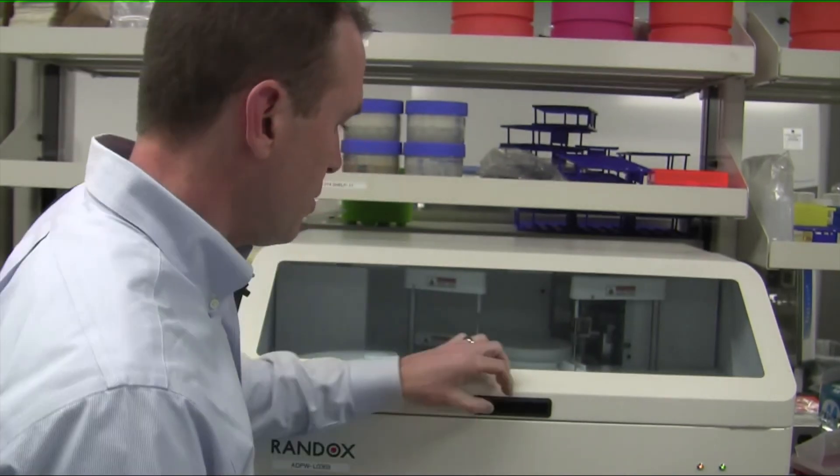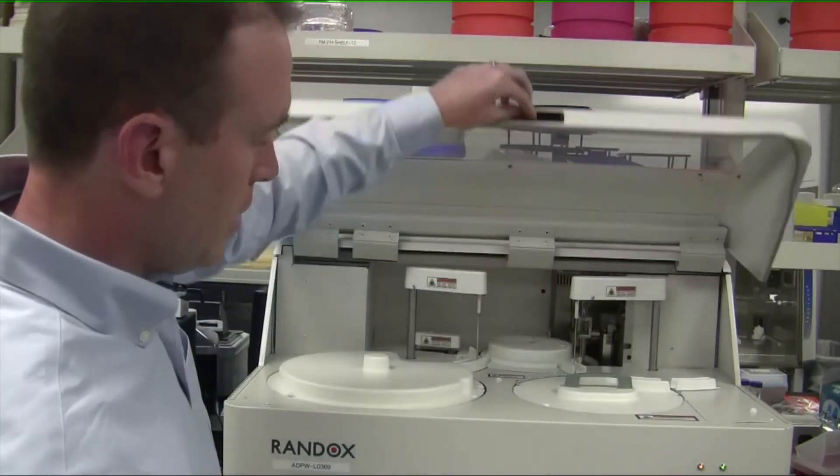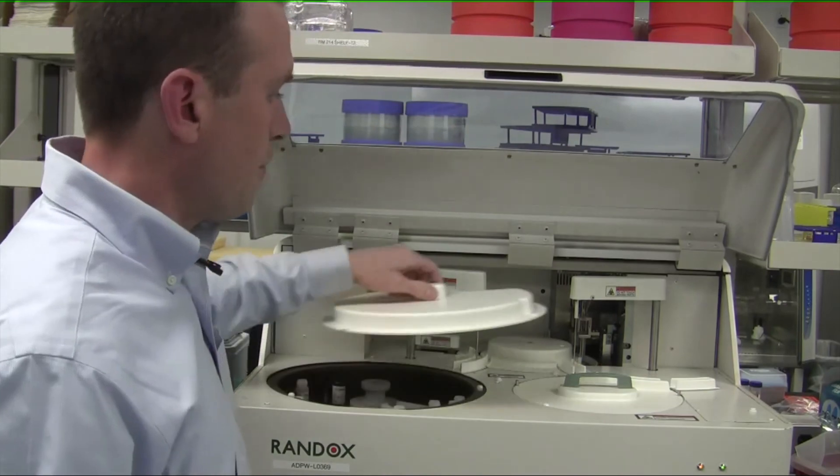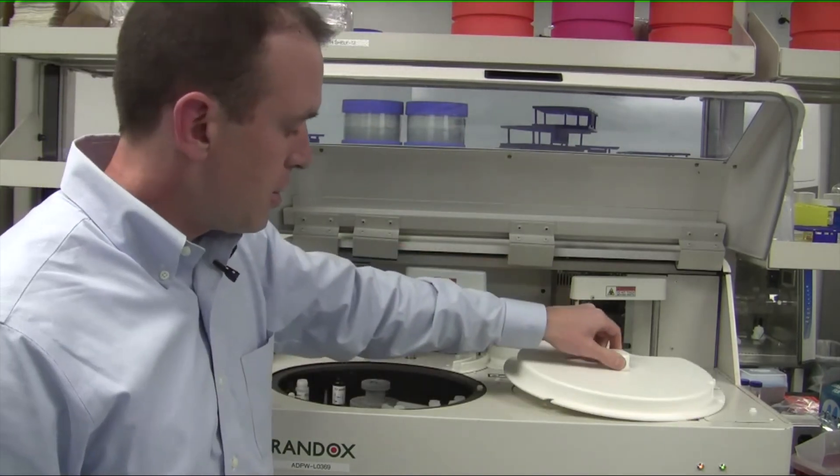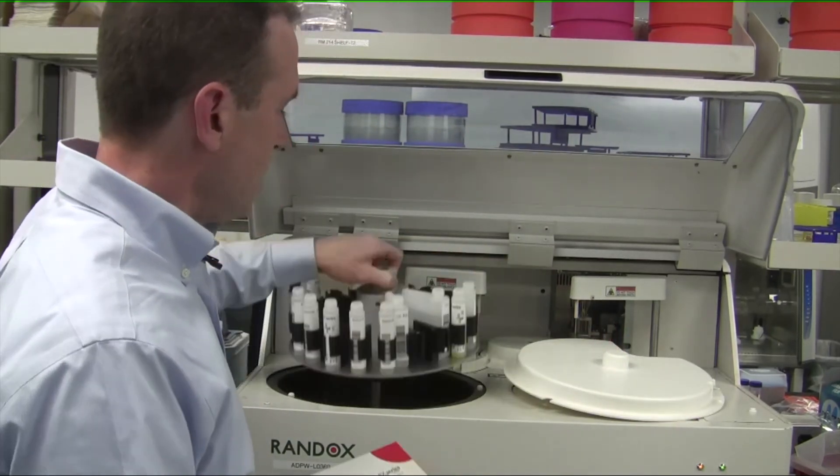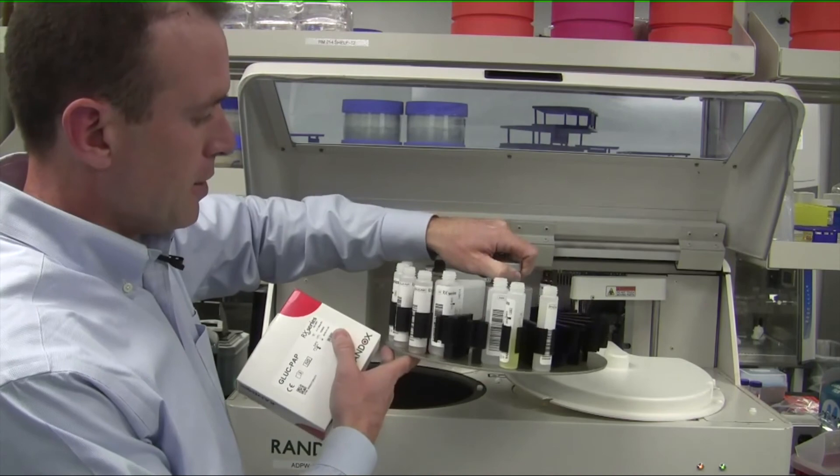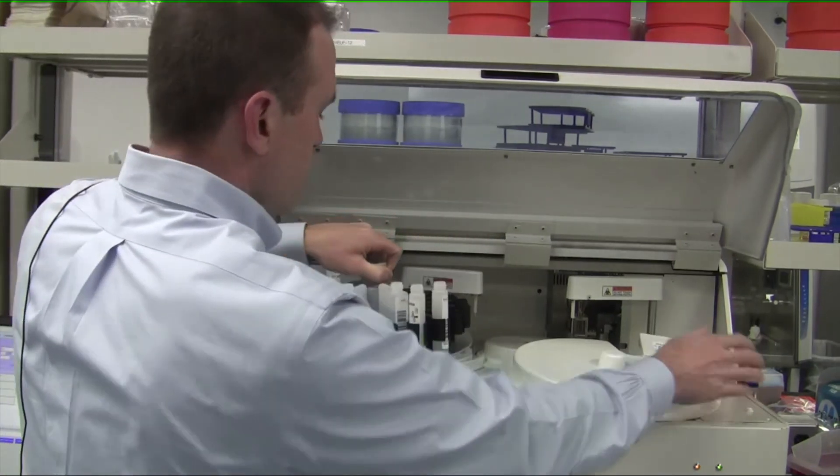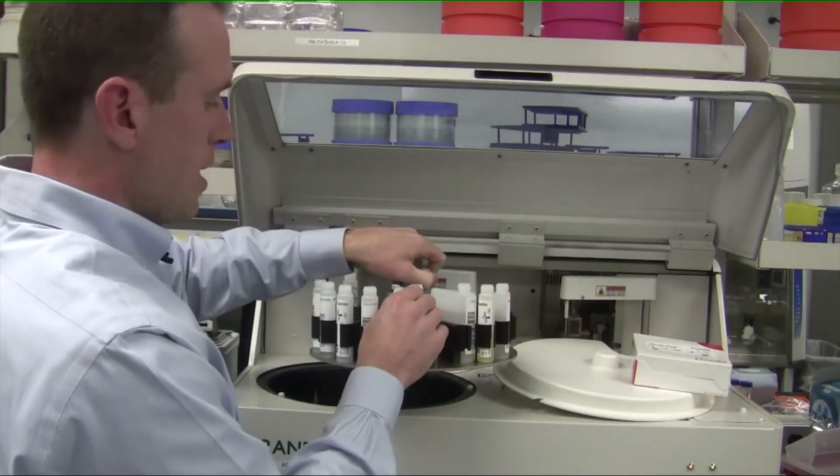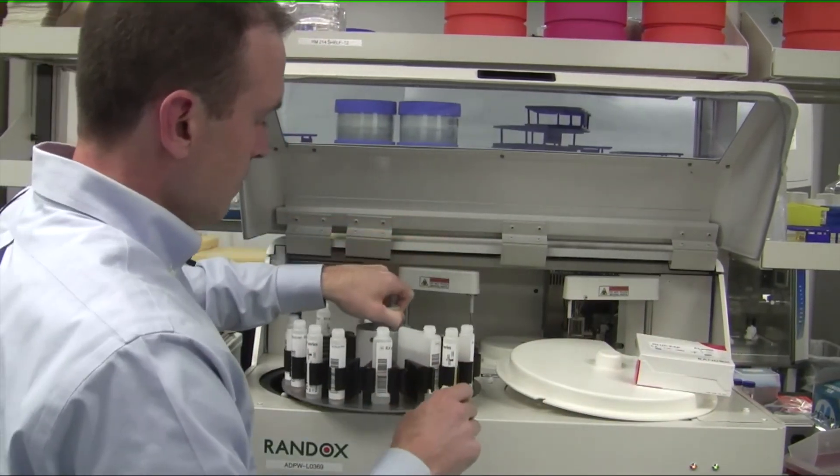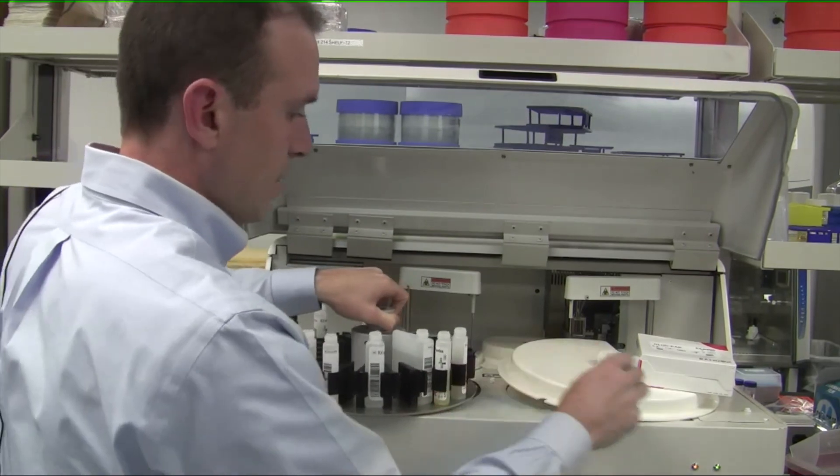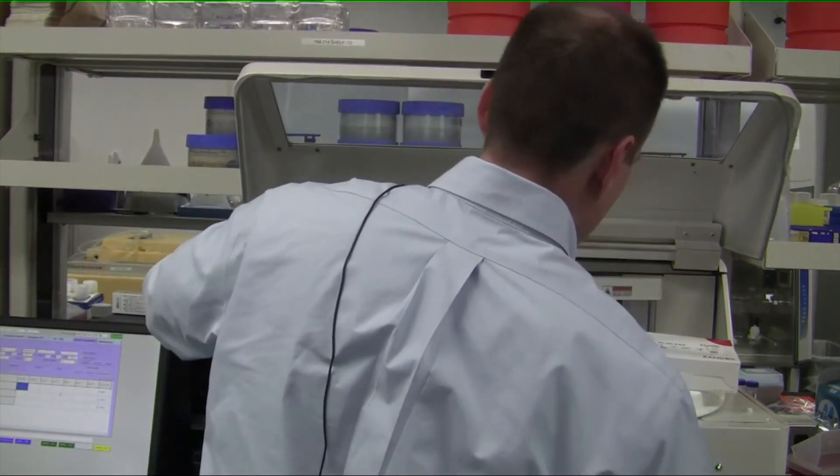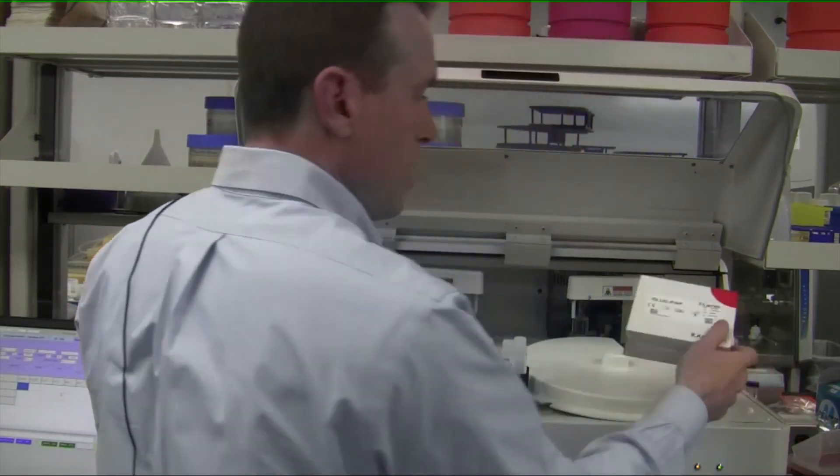Okay, so let's say that you'd like to change out a reagent bottle. Each reagent bottle generally is 20 milliliters, and that can do about 100 samples. Let's say you've run 100 samples for a particular reagent, and that reagent bottle has become empty. So what we're going to do is just open up the lid here, take off the cover for the reaction chamber unit. Inside is going to be all of your reagent bottles. So what you're going to do is simply take out the one that's empty.